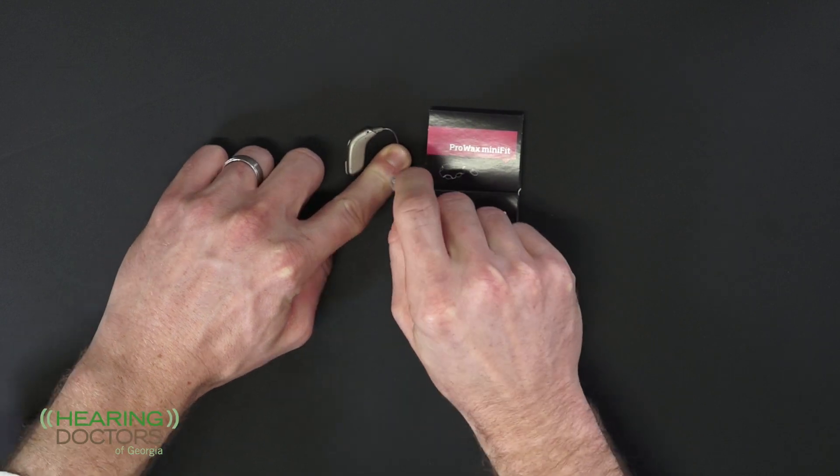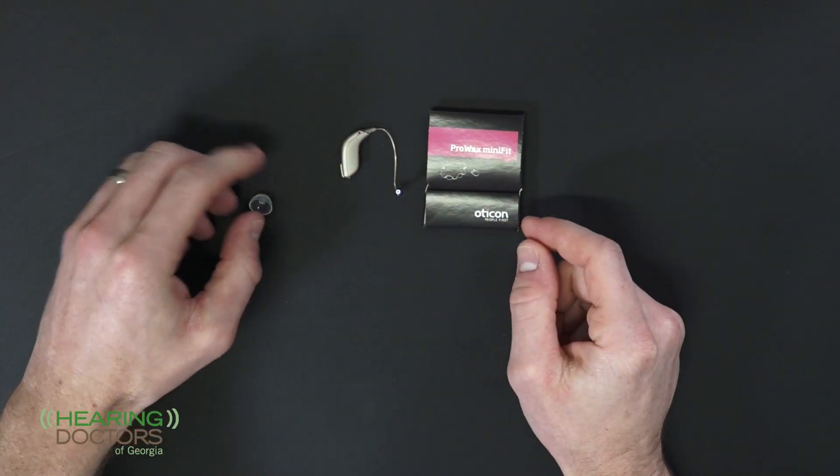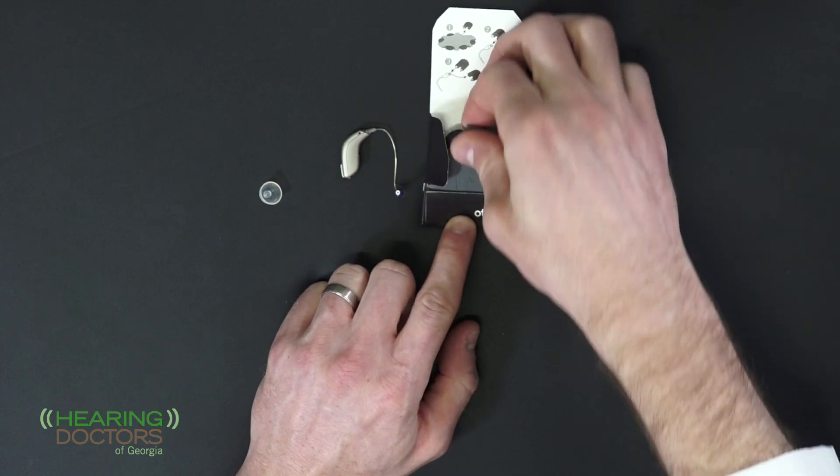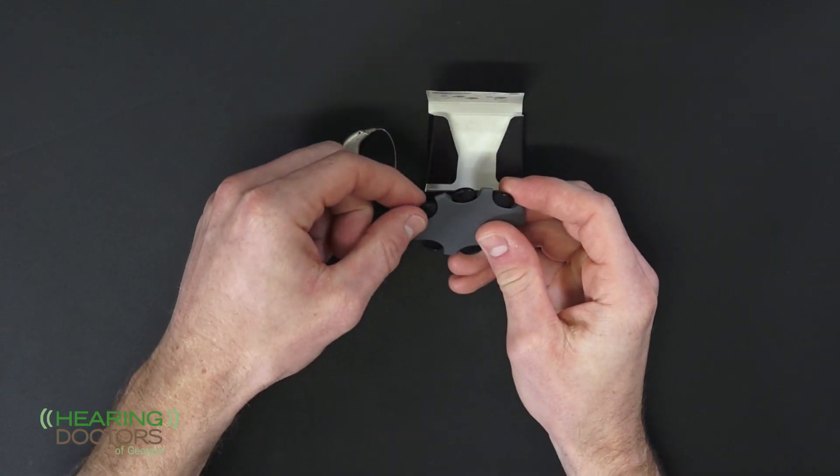You'll remove the dome to expose the filter. Next, you will remove a filter from its package.